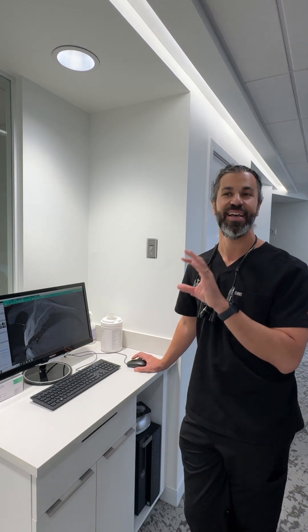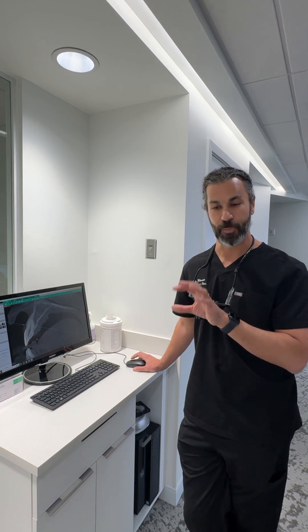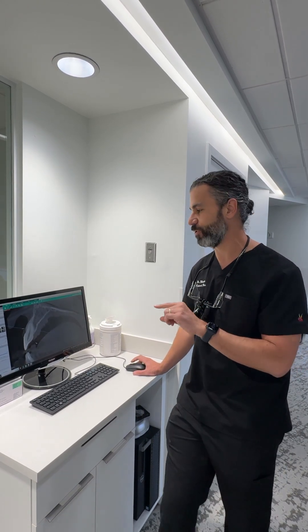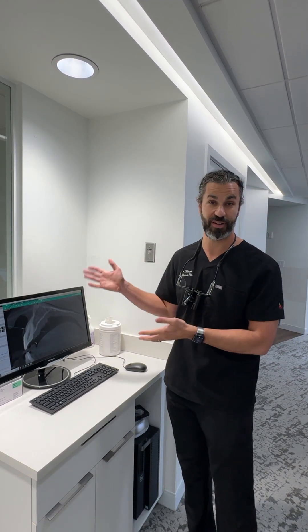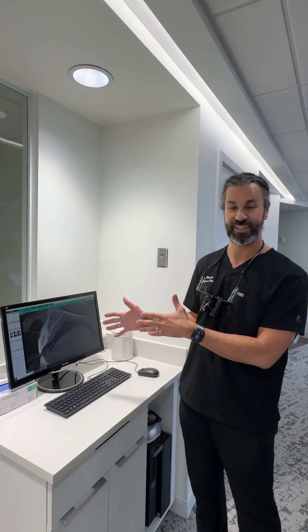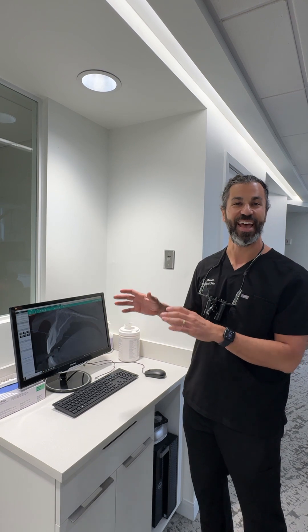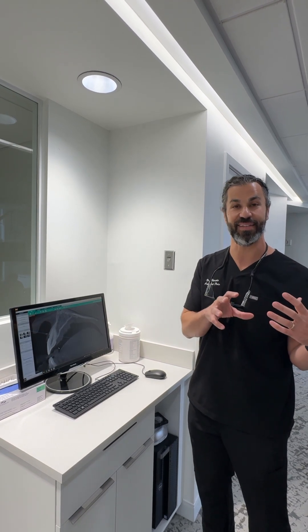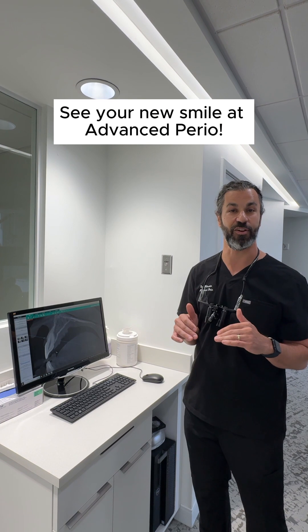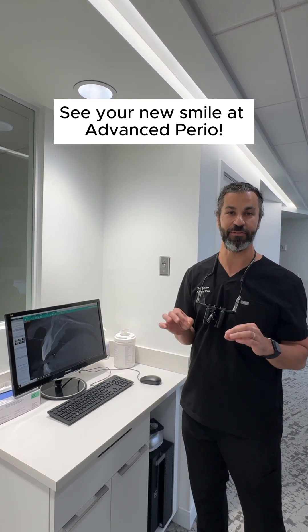I take this data, go to our smile design software and make a projection, and share that with the patient. The combination of these two technologies — our CT scanner with its amazing precision and detail — and our ability to take it to the smile design software and create a projection for our patients really takes our ability to plan your smile out to the next level.